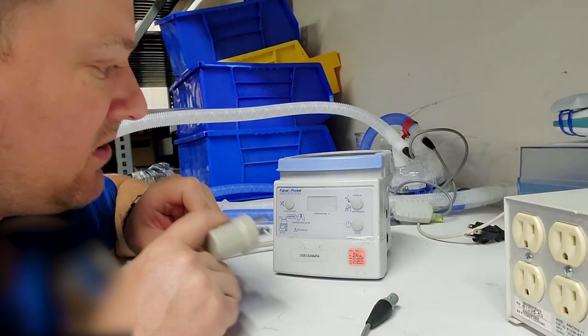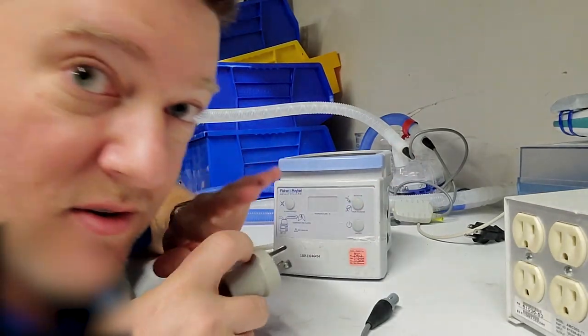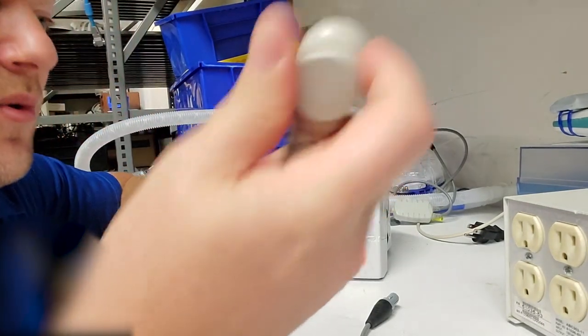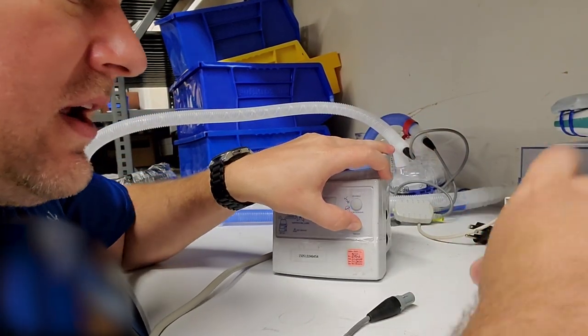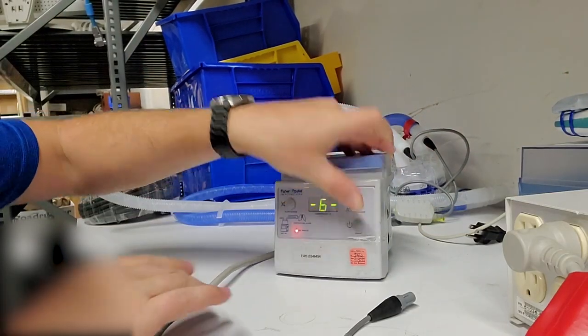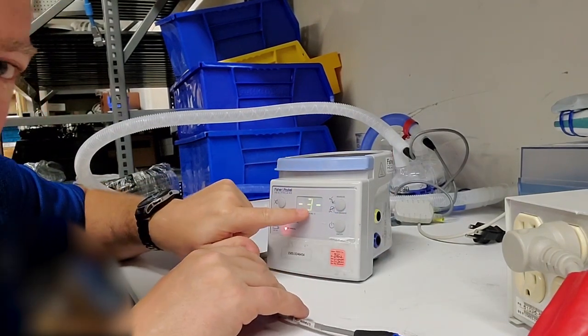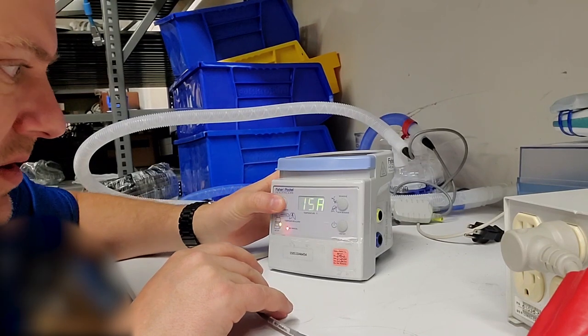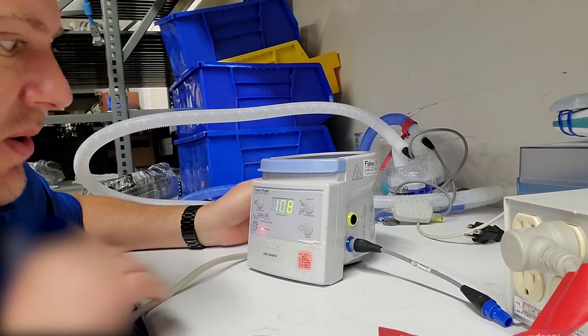In order to get this guy in service mode, you have to hold down the power button while you're plugging it in, and this all kind of happens quickly, so watch how I do this. Here we go: holding it in, it goes six, five, four, three, two. When it gets to one, press this button over here, and we're going to plug in the gray.